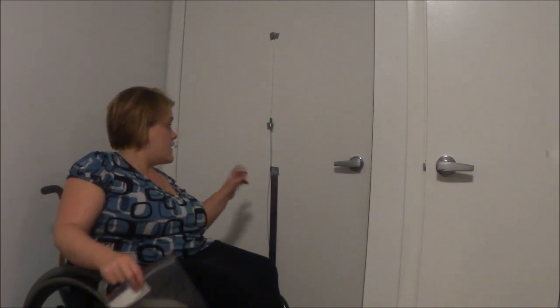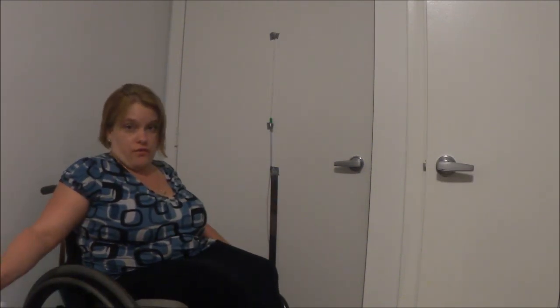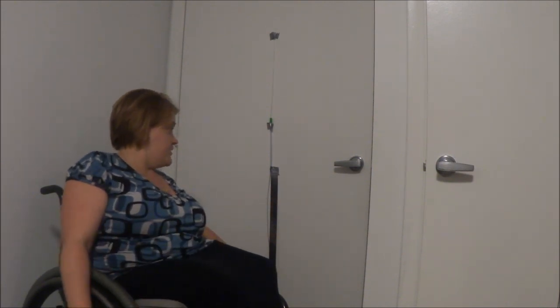This is now ridiculously long — let's actually measure it out. The catheter extender itself is 24 inches, plus whatever your regular catheter is, so that's 40 inches right there. That will help you out with any kind of situation that you're in.